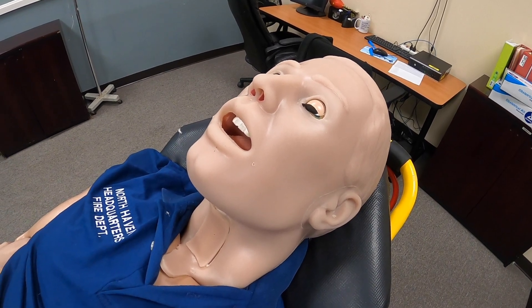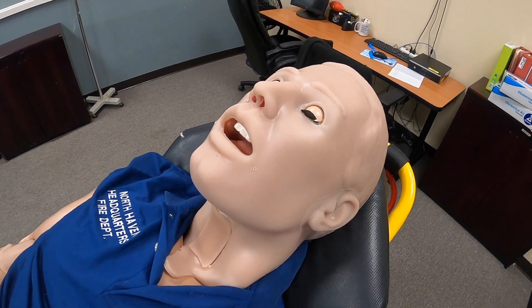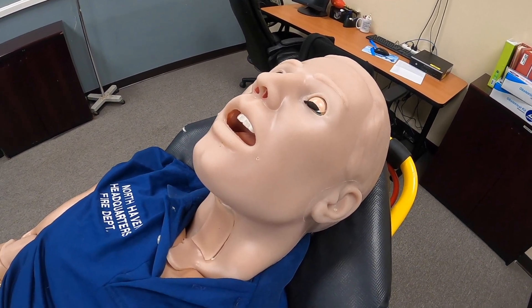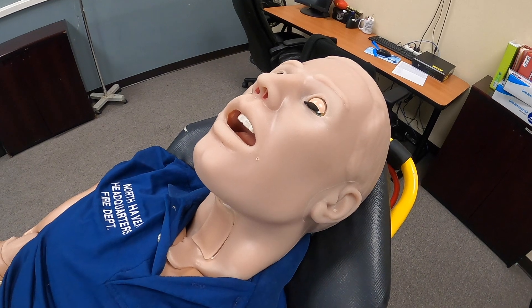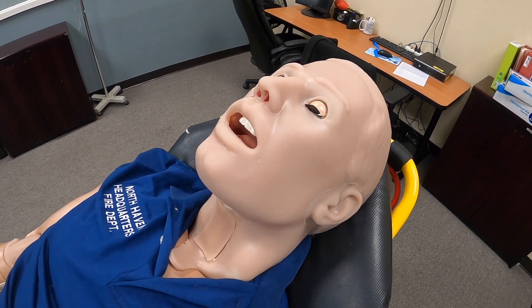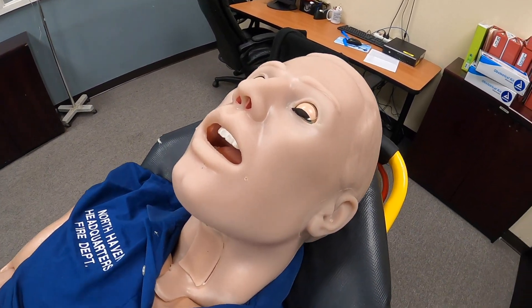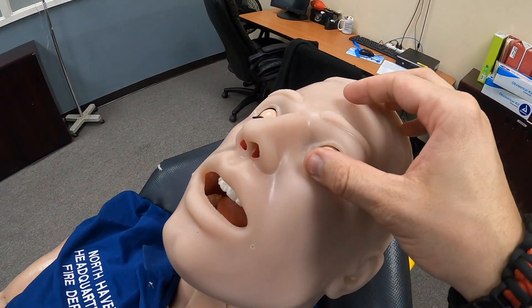This is our high fidelity trauma mannequin. It's used in our EMT programs and also the paramedic programs for high fidelity simulations. We're going to go over a few of the features that it offers.